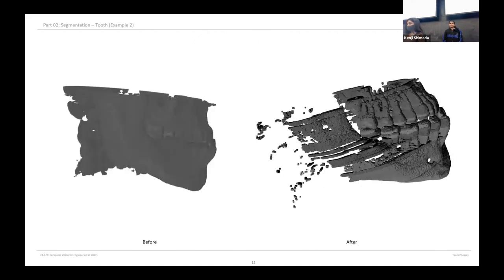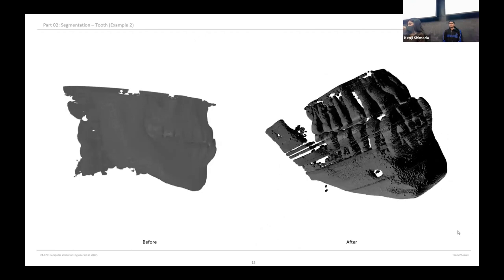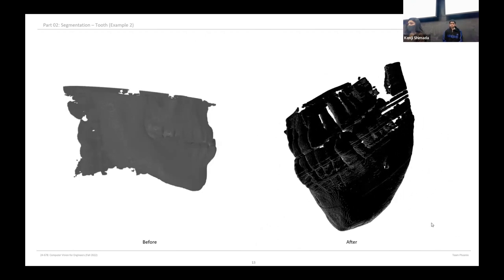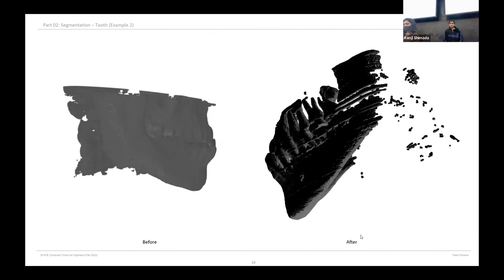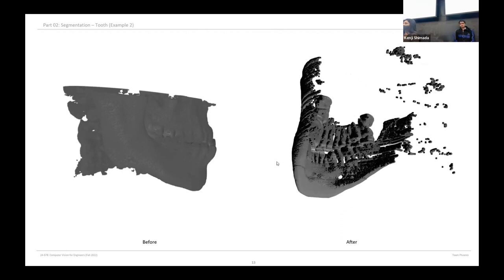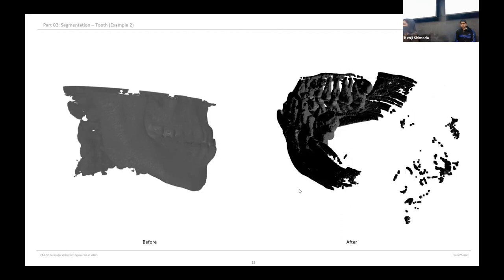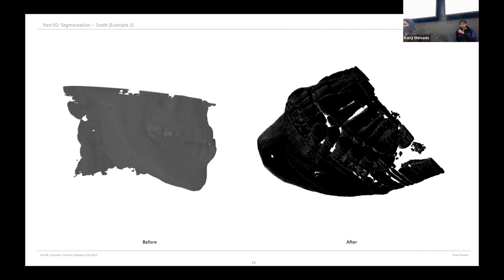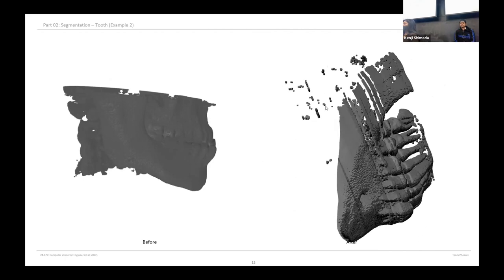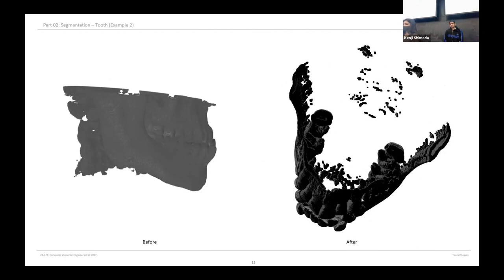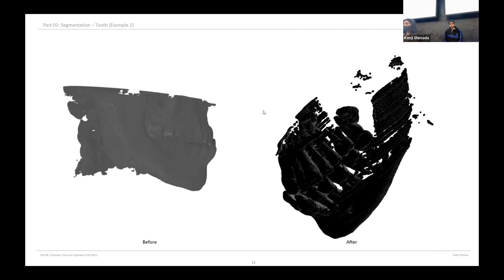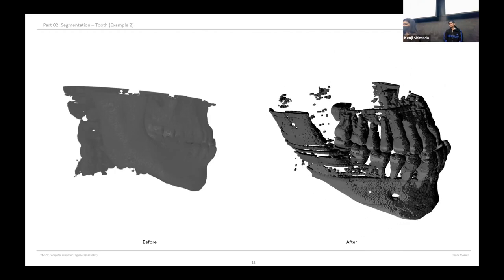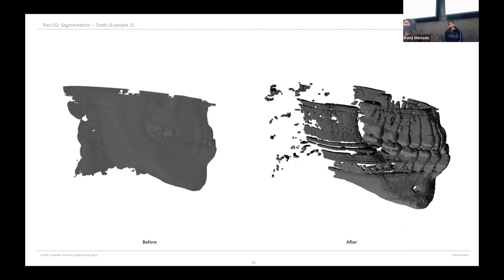The second is the example for our second data that we had. On the left is the image we showed previously after generating our visualization for the DICOM. On the right, you see the tooth segmentation that we performed using clustering. We were able to clean out the tooth geometry and now it's clearer to see and perform any kind of detail analysis that we would want to perform on it.